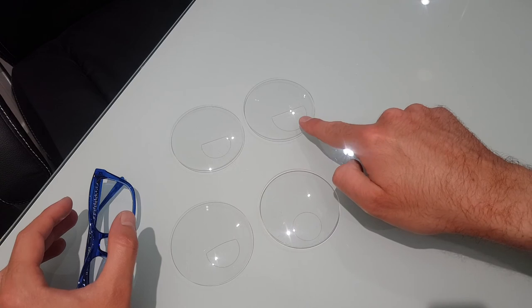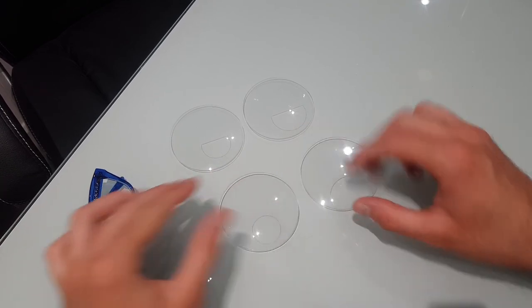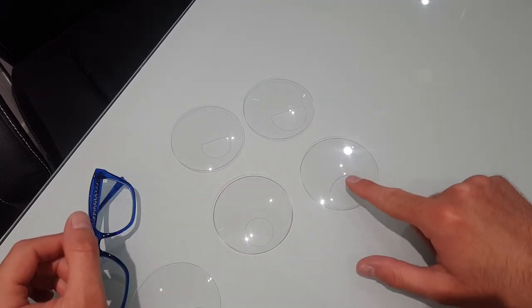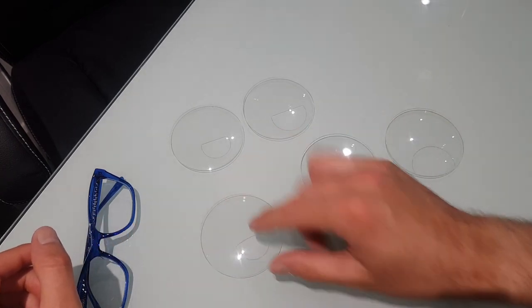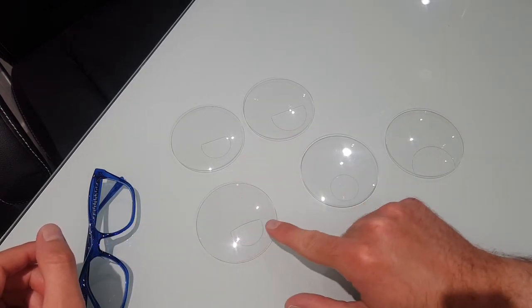So D28, D35, you've got round segs, round 24, and round 38. And then lastly, you've got a C28, which is that curved top there.